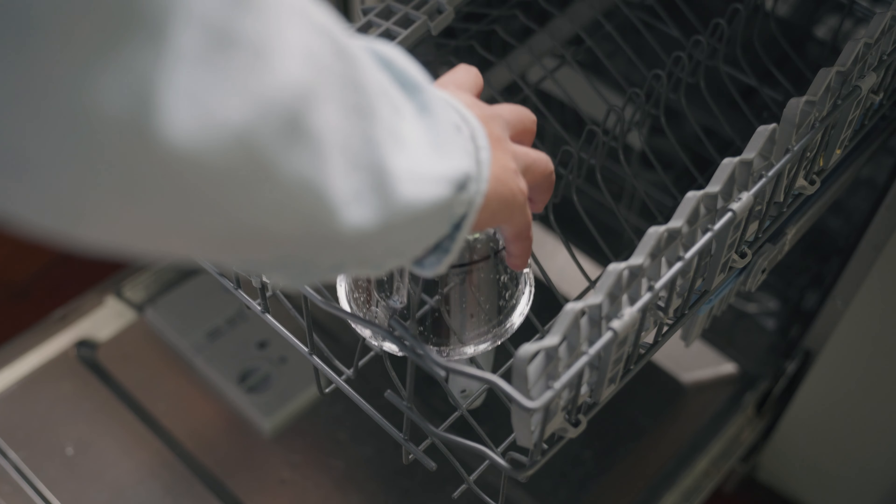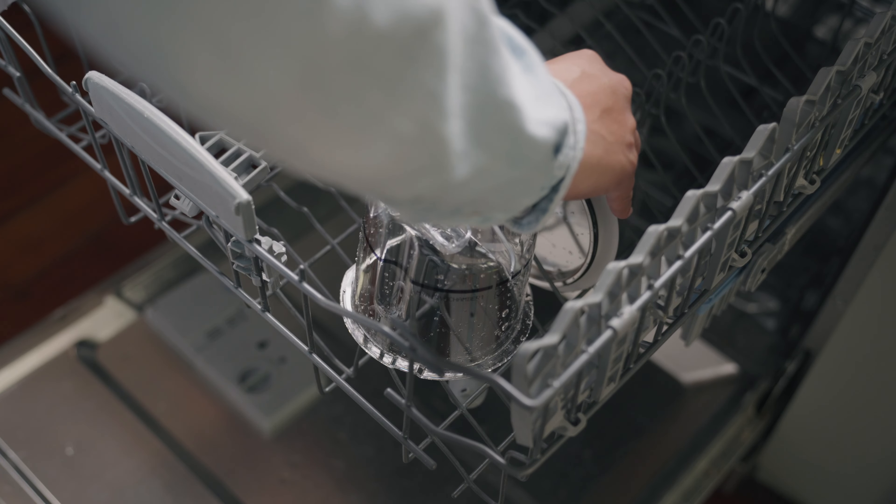Once every seven days, the chamber can be cleaned in a domestic dishwasher. Remove the base from the chamber dome and place both parts on the top shelf, ensuring they are able to drain.